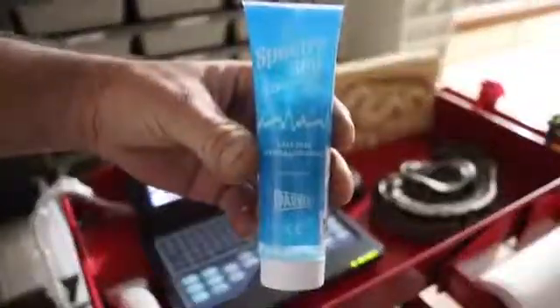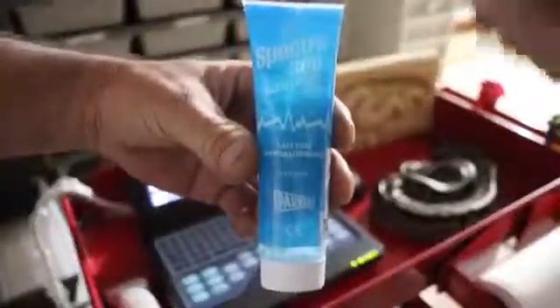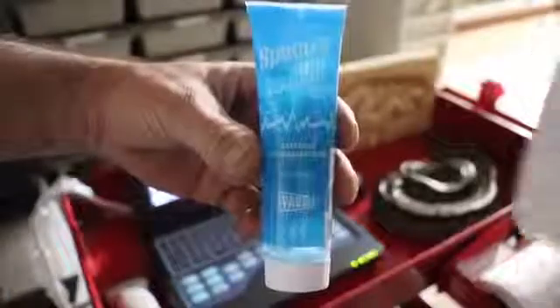I don't even know where it is to show you, but this stuff is much cleaner, much better. This stuff works too, but it's thinner and it makes your probes lie around all crazy, and it's expensive.